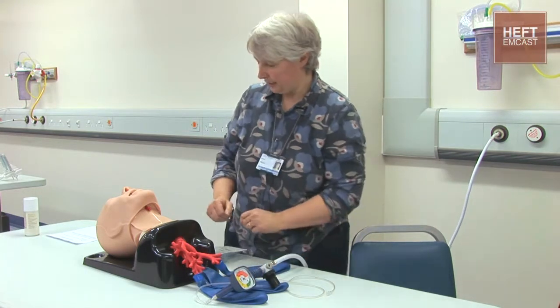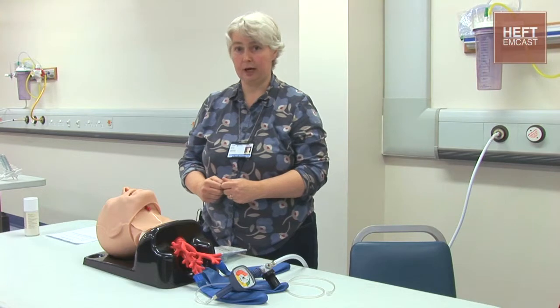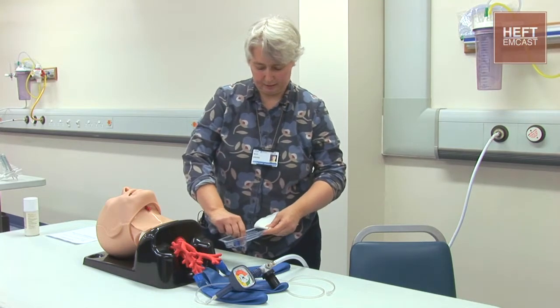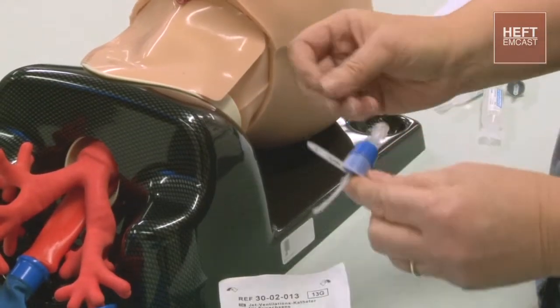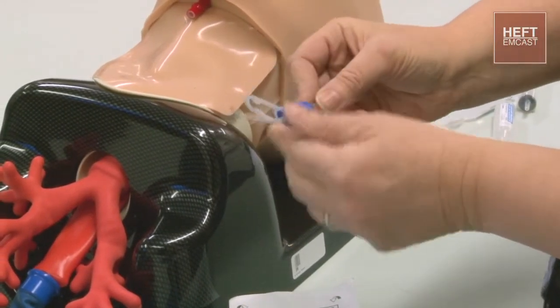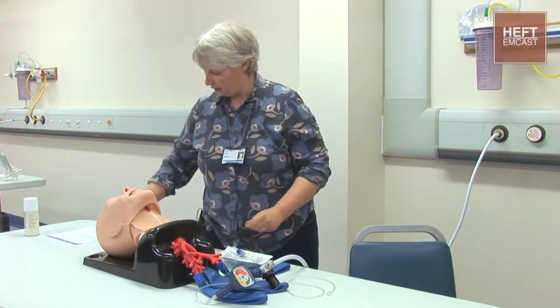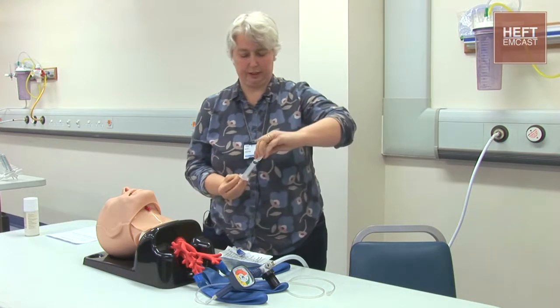So if we assume that this is a patient who we've been unable to intubate and is rapidly desaturating and we're unable to oxygenate, we could pick up a jet ventilation cricothyroid catheter. These come in various sizes — this is an adult one, it's a 13 gauge — but they also have available paediatric and infant sizes. As you can see, it is just a needle with a fairly rigid catheter inserted. You also need a syringe and some saline to confirm that you're actually in the trachea.